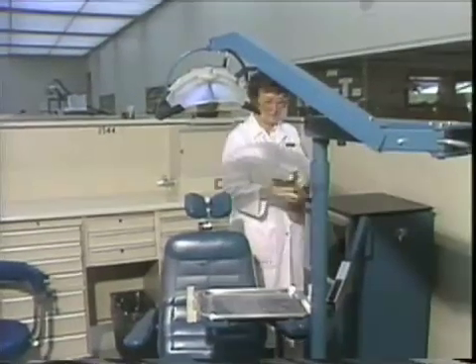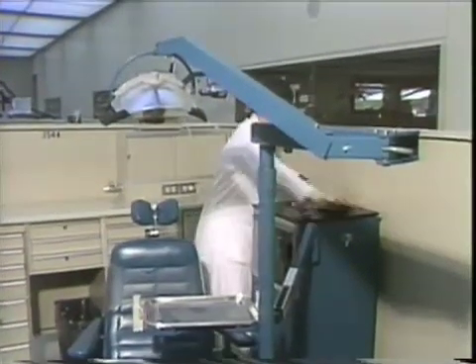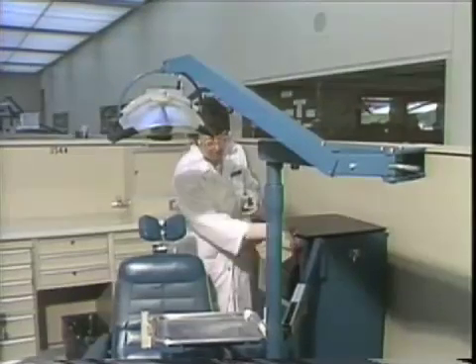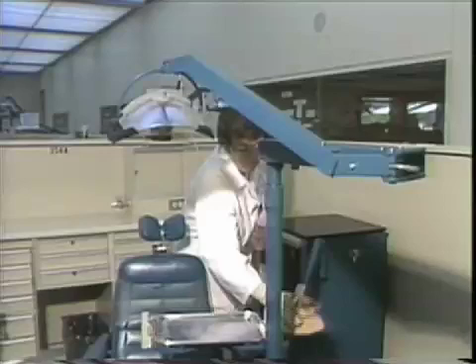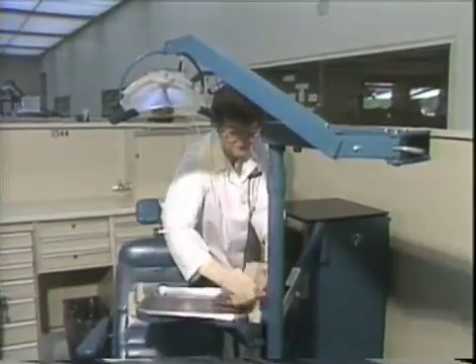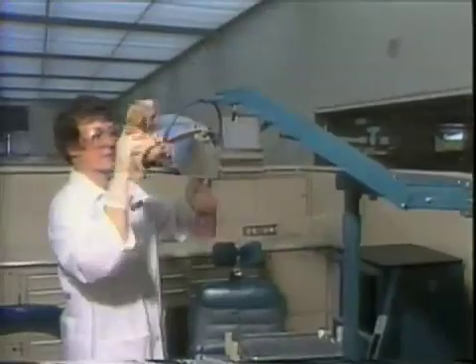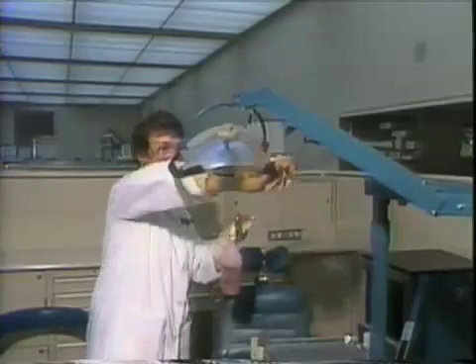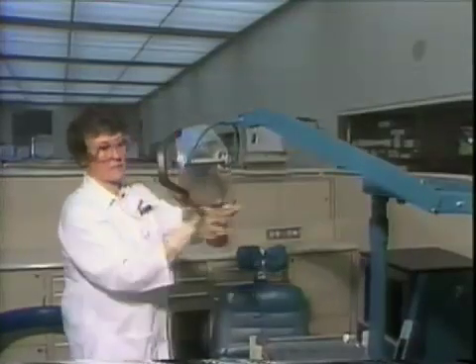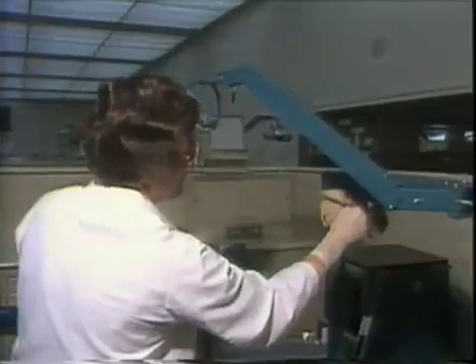Spray the top of the unit and wipe with a paper towel and let air dry. The handle to the instrument enclosure door, the flex arm release lever, the operator's tray, and the instrument holders should also be wiped. Do not spray the dental light. Use a saturated towel to wipe the light handles, the plastic cover on the light, the light switch, the light intensity control, and let air dry.